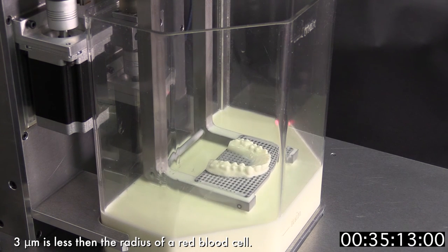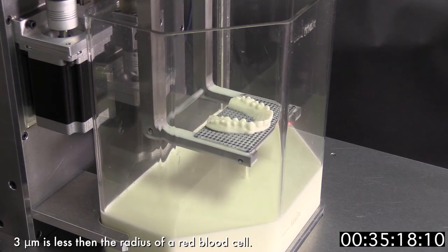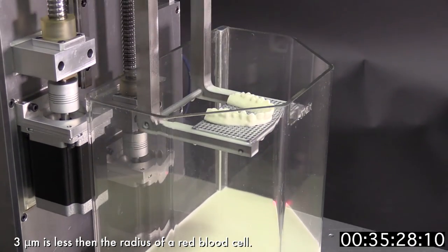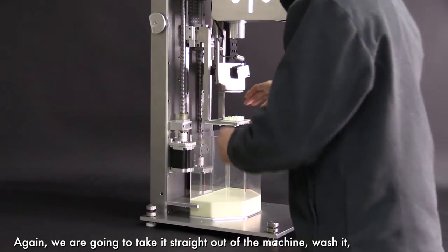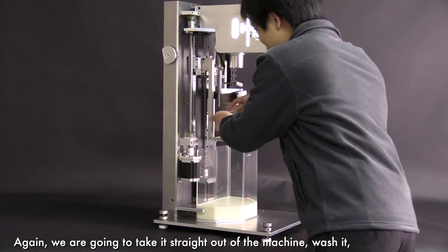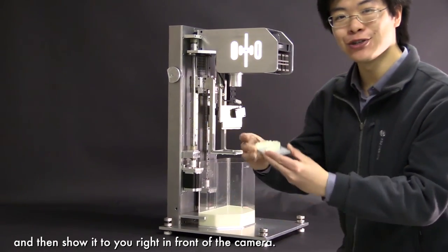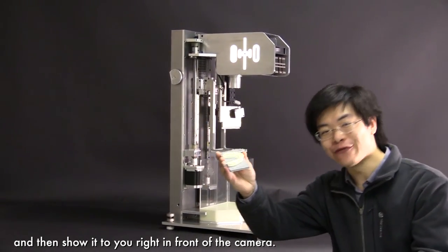All of these high technologies are integrated into our easy to use desktop machine. Again, we are going to take it straight out of the machine, wash it, and then show it to you right in front of the camera.